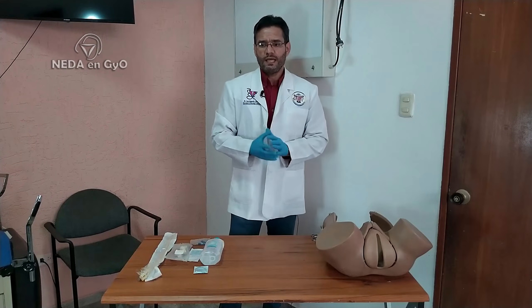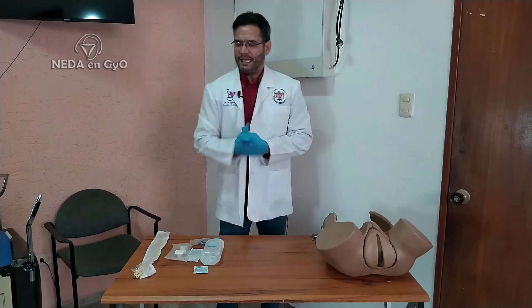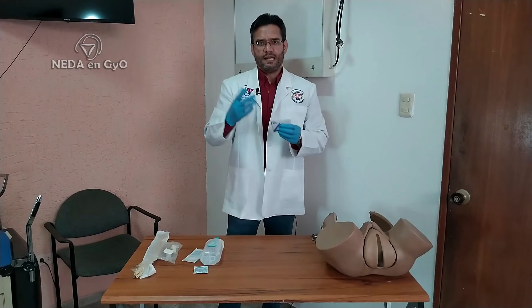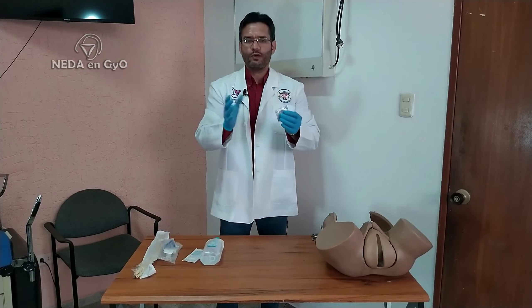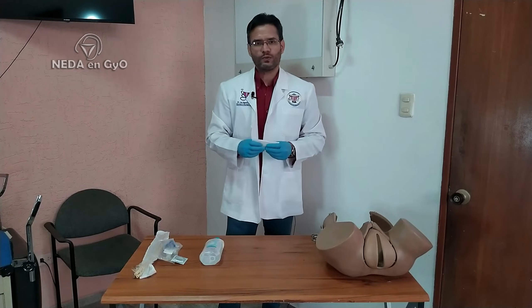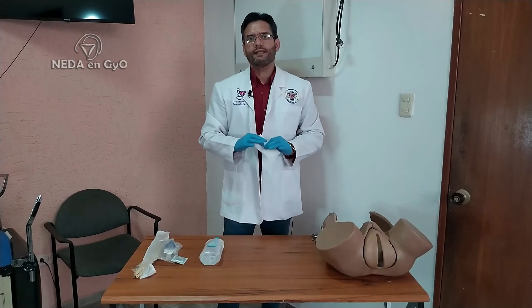What materials are we going to use? First, we need a Foley catheter — it can be a 12, 14, or 16 French Foley, whichever we have available. We have a macro-drip set, a normal macro-gotero used for intravenous infusion. We have a clamp, the type used for clamping the umbilical cord of the baby. A condom — a normal, common condom, like any standard preservative. And a suture, preferably silk size 1, but Vicryl or nylon — any available suture can be used. I am going to use Vicryl, which is what I have available right now.